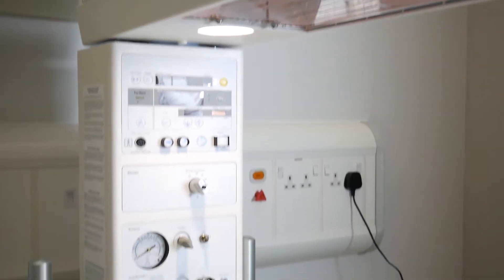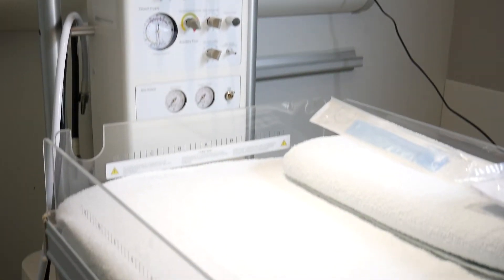Hello, my name is Alice and welcome to the Don't Forget the Bubbles YouTube channel. In this video we're going to talk you through the features of the resuscitaire.